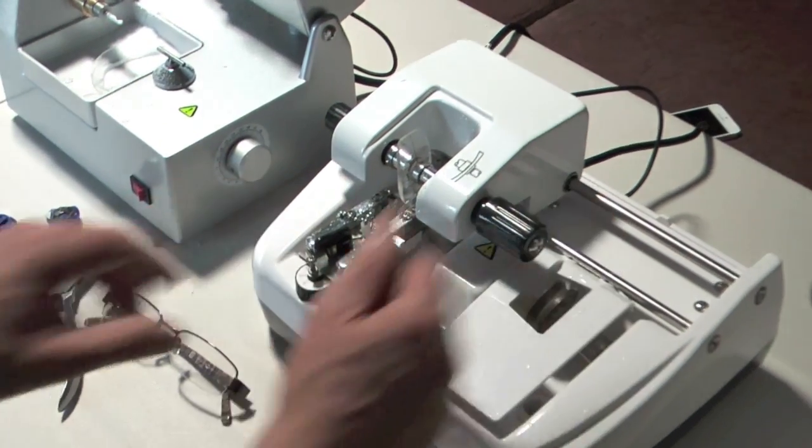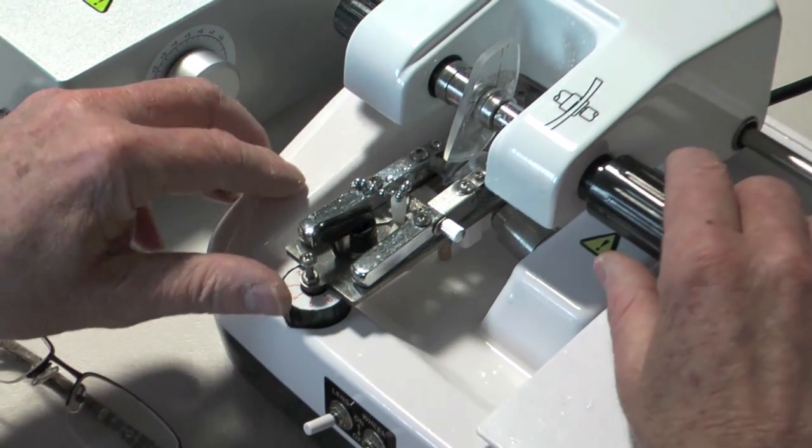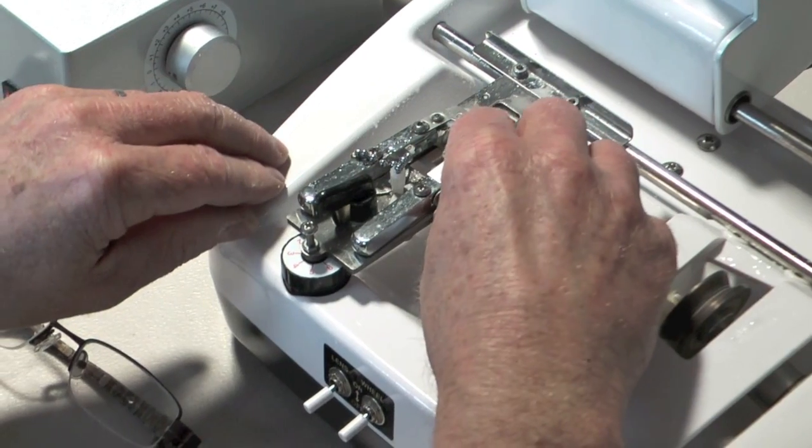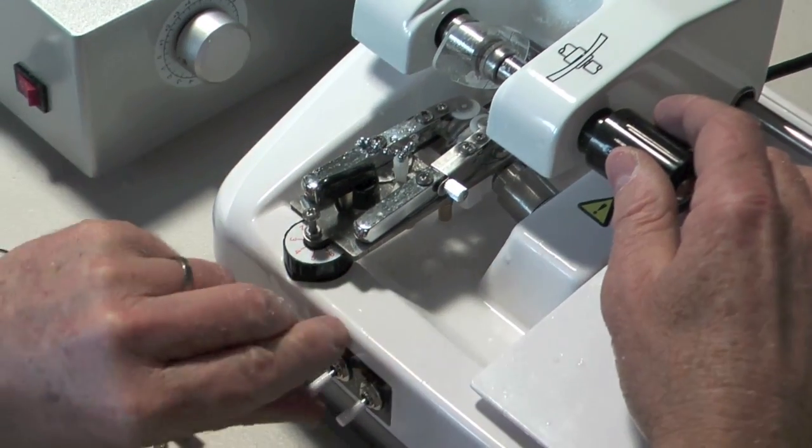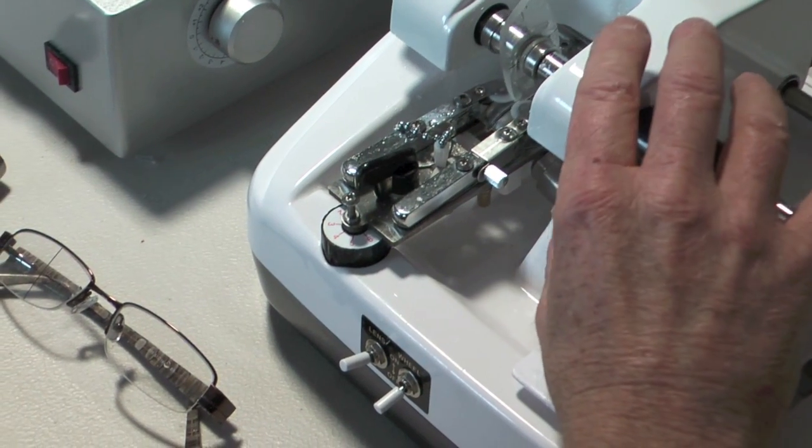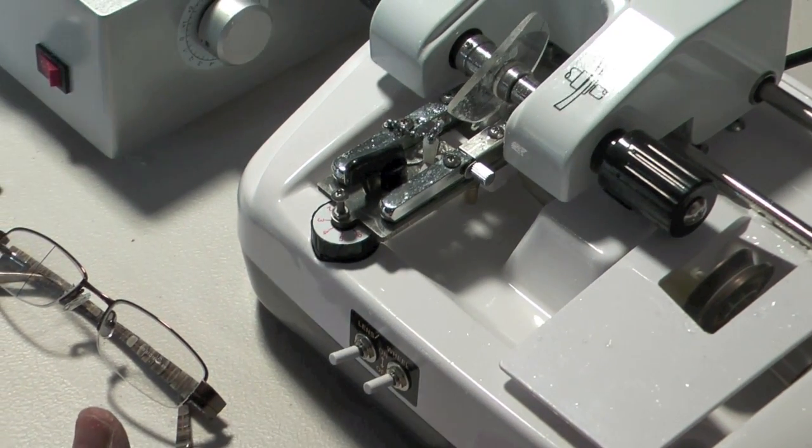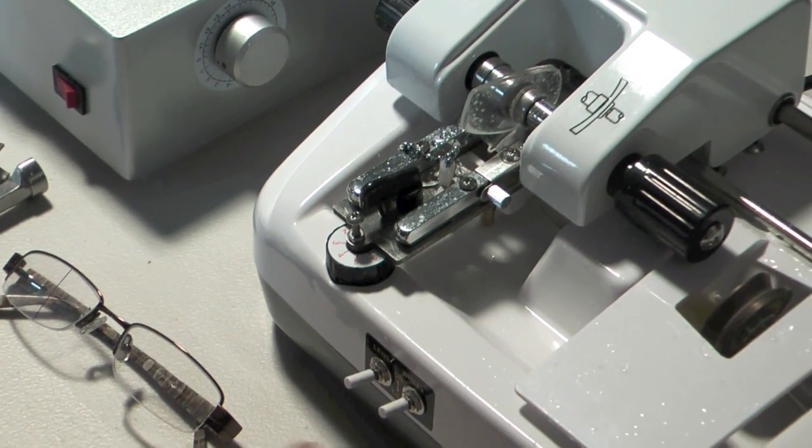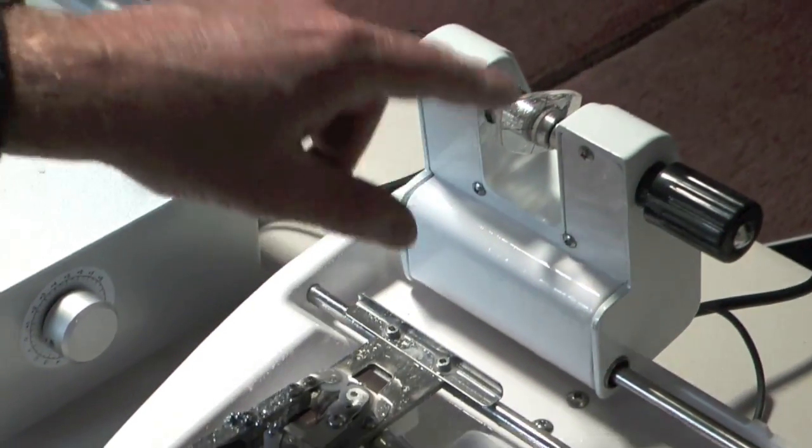And then I'm just going to let it do a couple of circuits. I think that it's wanting to put the groove too close to the back surface. So I'm going to just use this to bring, I'm moving this that way a little bit, so that it's actually pushing the groove further to the front. So this will take a little bit of experience. You just need to do it a few times. And I think that that's in a good position now.